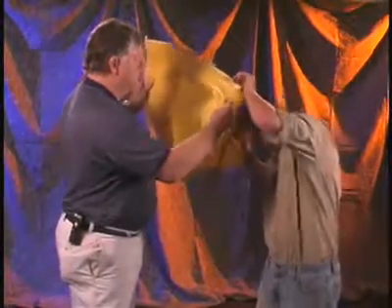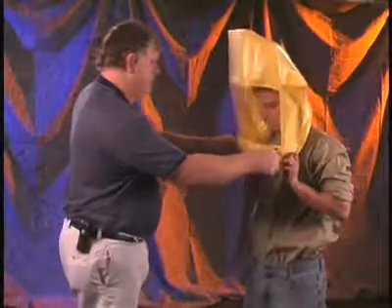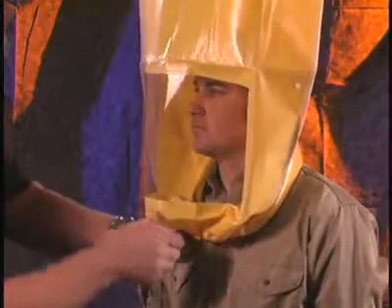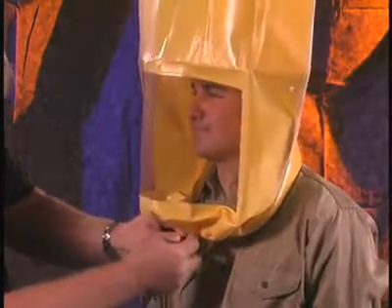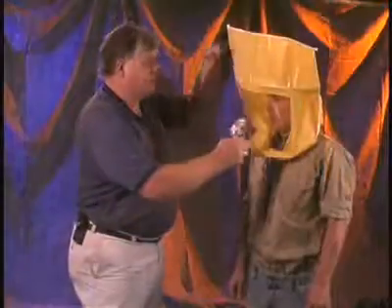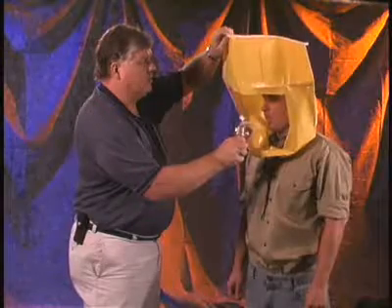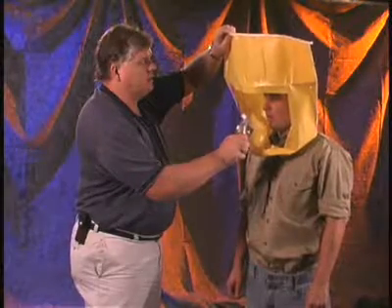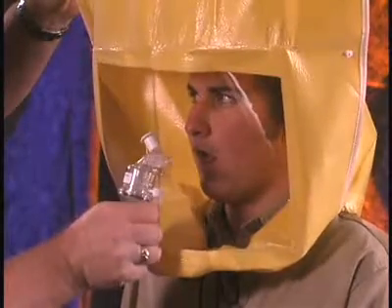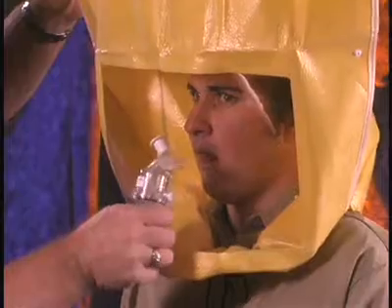After explaining the fit test procedures to the subject, have them don the test hood without a respirator. Position the hood so there's about 6 inches between the subject's face and the window. Instruct the subject to breathe through their mouth with their tongue extended. Inject the sensitivity test solution into the hood through the hole in the window. Direct the nozzle away from the nose and mouth of the test subject and squeeze the bulb 10 times, fully collapsing and expanding it on each squeeze.